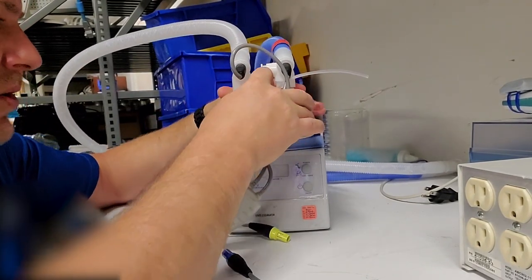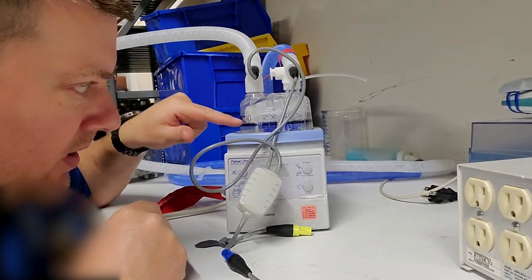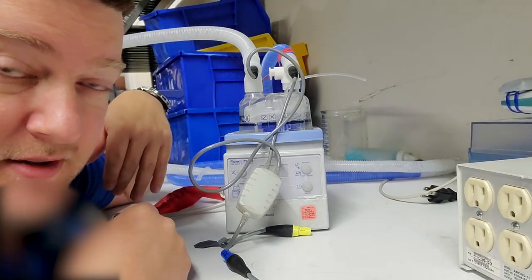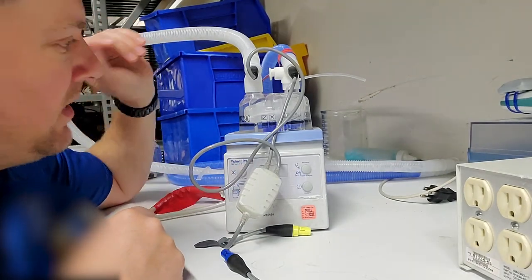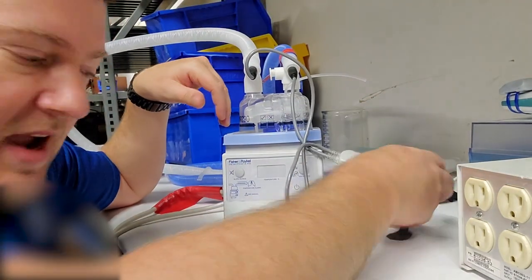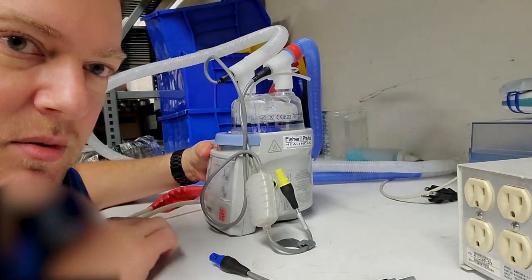What happens is they load the consumable and fill it with a certain amount, right up to this point. You attach the hose that goes to your patient, and then the heater wire attaches, and then the temperature probe will also attach to the blue port right there.